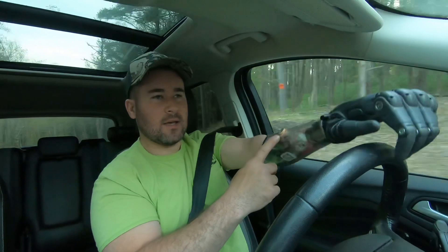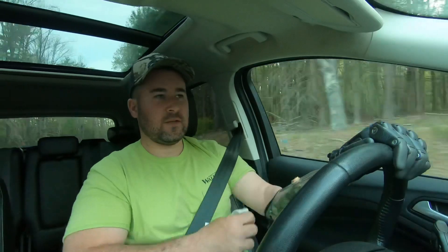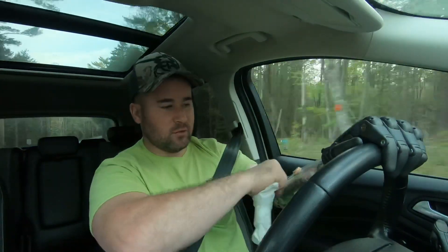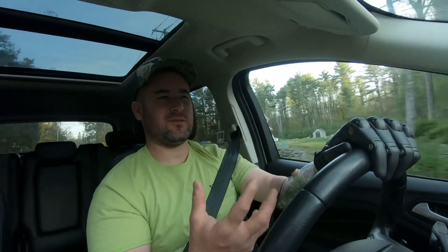This plug here allows you to pull this arm on by using a donning sleeve. This is going to roll over your skin, and then you feed this end through the hole in the plug. You pull the plug out, it's through the hole, and then you pull your arm in. It doesn't leave any air in there when you pull your arm in. It's snug — snugger than a shoe. Think of a shoe that's too small for you — there's no room to move. It's very form-fitting. Then you put the plug in and you're good to go.